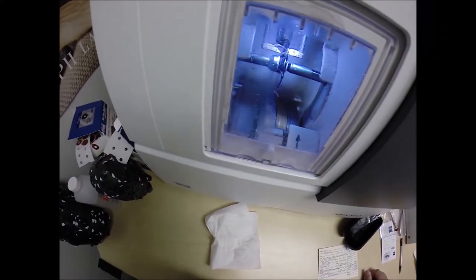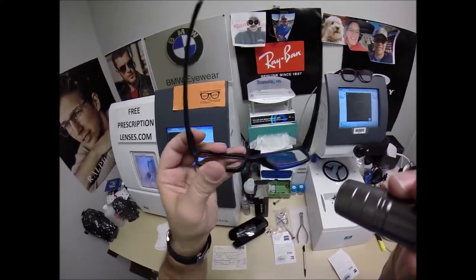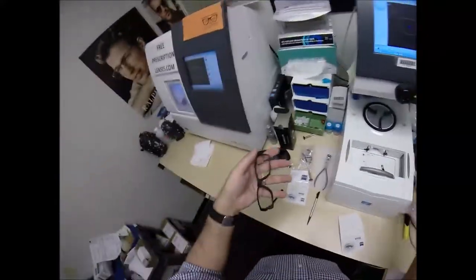Measuring the thickness of the lens to know where to place the bevel so you have the least amount of edge thickness. Corey, you've got nothing — no edge thickness whatsoever. With this prescription in this frame, with these thinner, lighter weight lenses, we'll come down here to the lensometer.